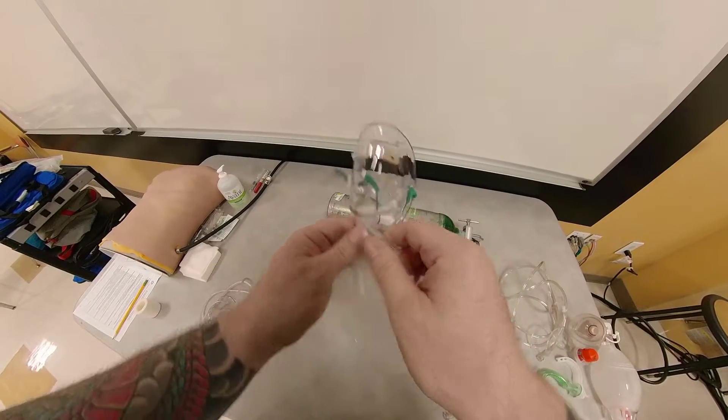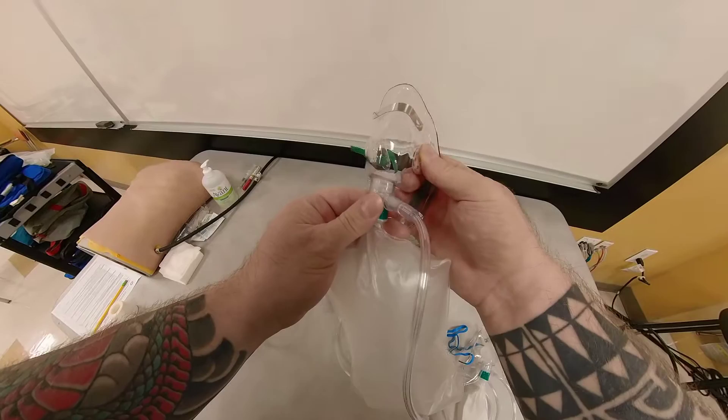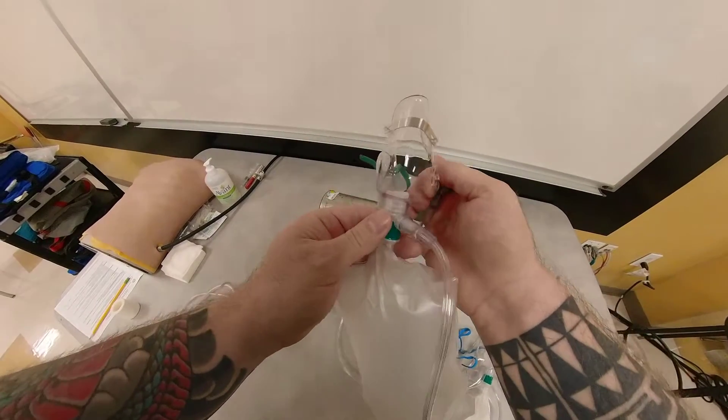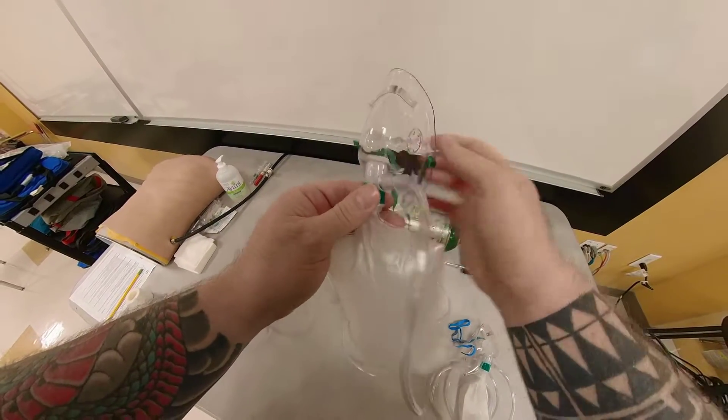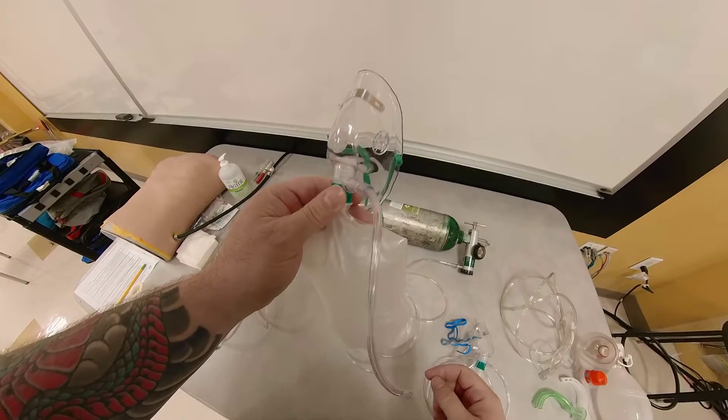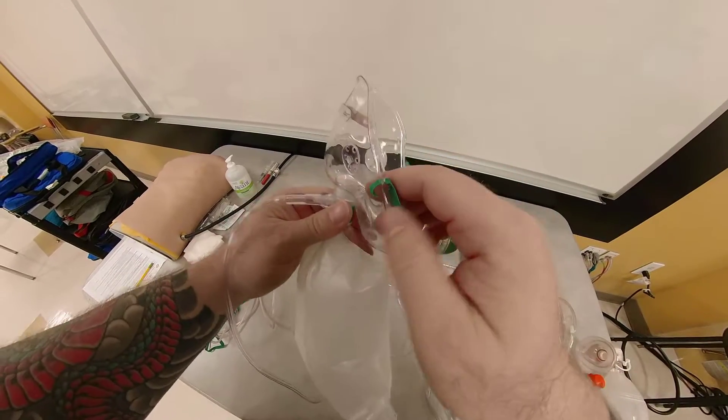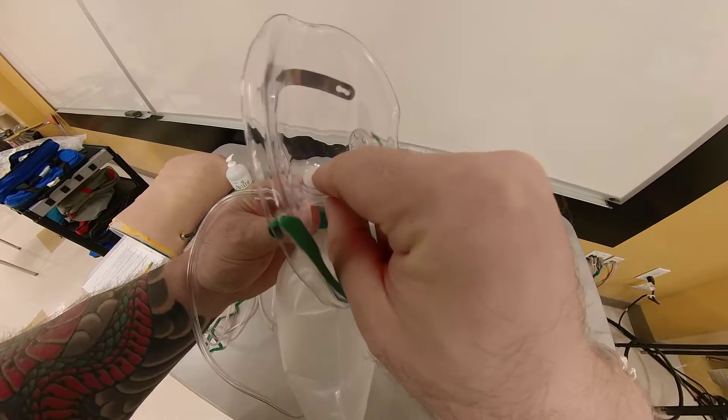And you will say, well, what's the purpose of this? The purpose of this is it's a safety feature. And they call this a non-rebreather mask with a safety valve. So what happens? Think of it like this. When a patient takes a breath in, this valve opens.